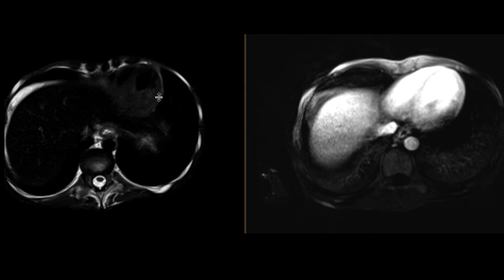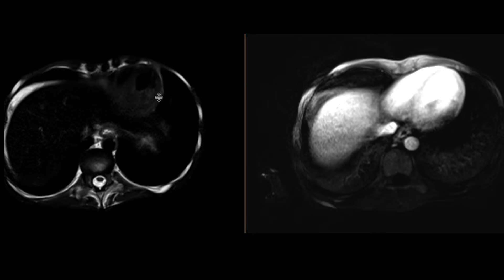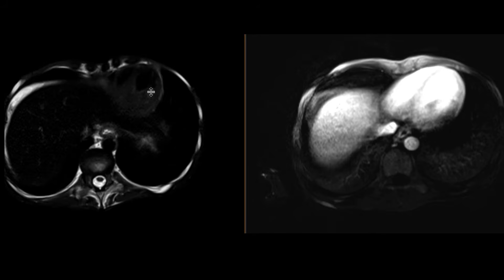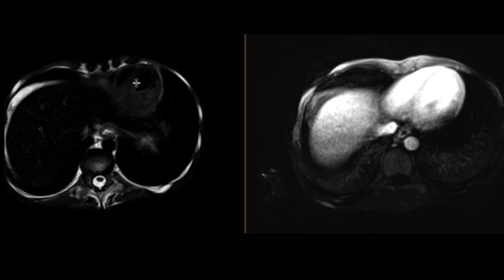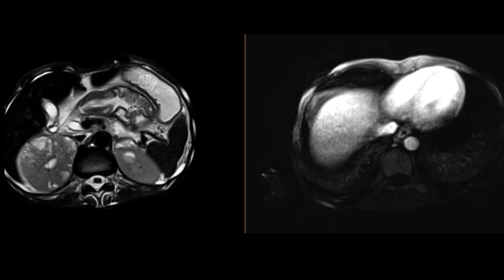This is a patient who had renal abnormalities on a non-contrast CT scan. An MRI was suggested for further evaluation.